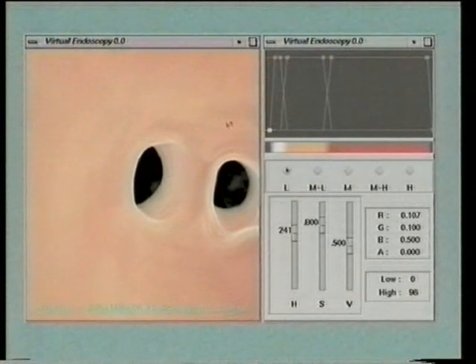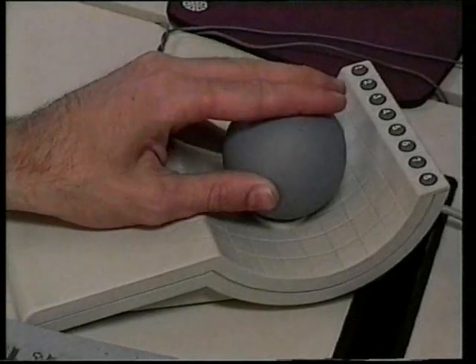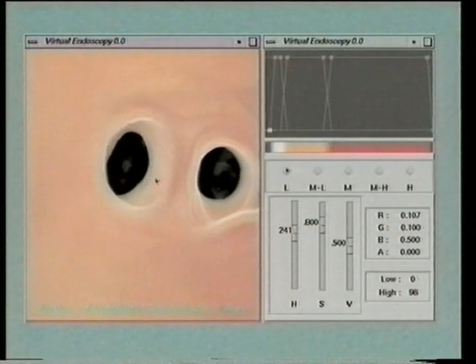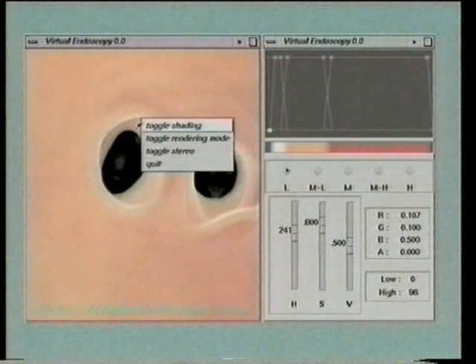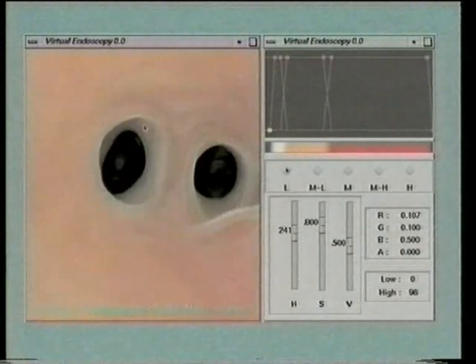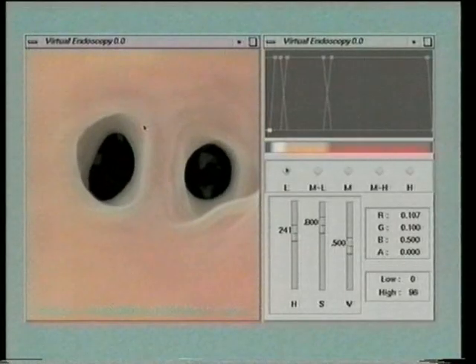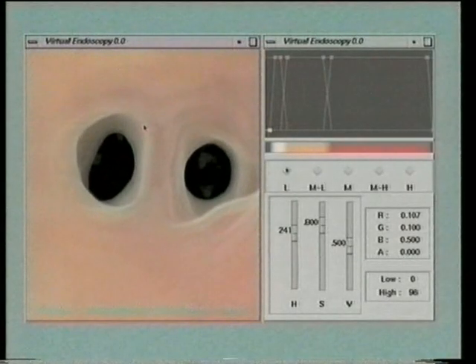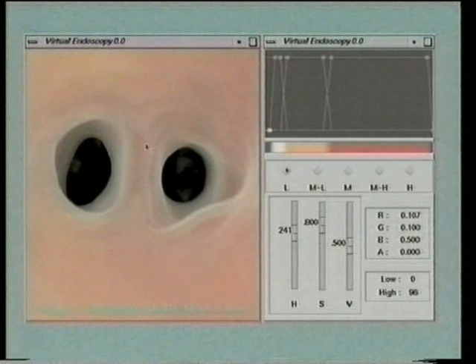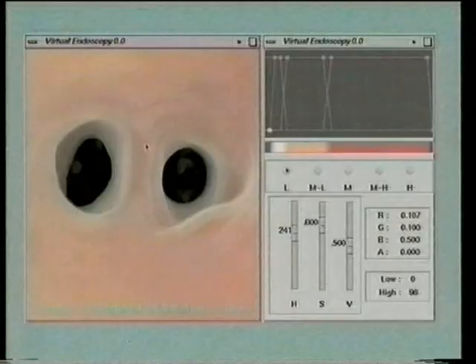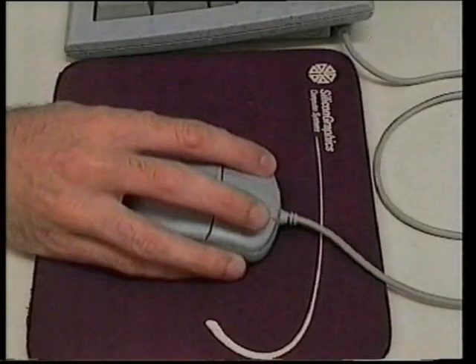For interactive performance, we render volumes through back-to-front slice composition, exploiting 3D texture mapping and blending hardware. Our acceleration techniques detailed in the paper include adaptive sampling and zoom rendering. The ability to render perspective stereoscopic views at interactive speeds dramatically improves depth perception and enables direct 3D interaction solutions for performing complex tests.